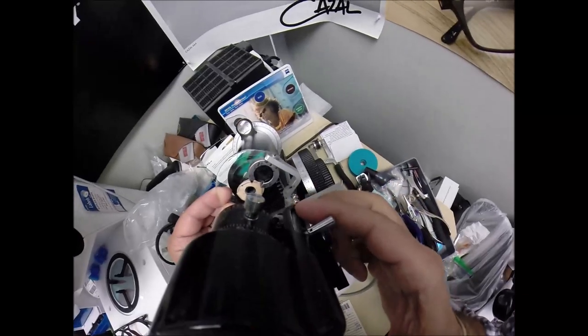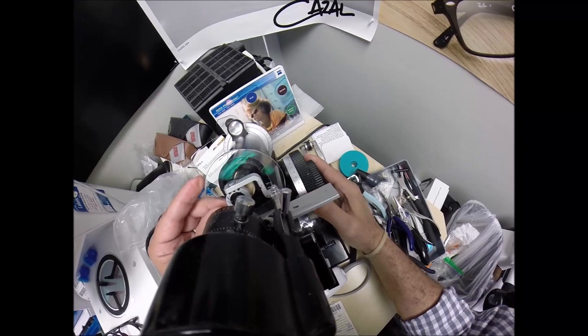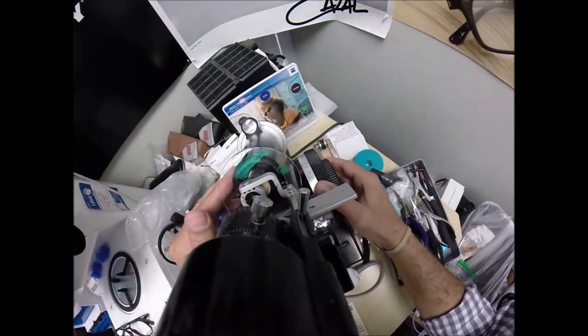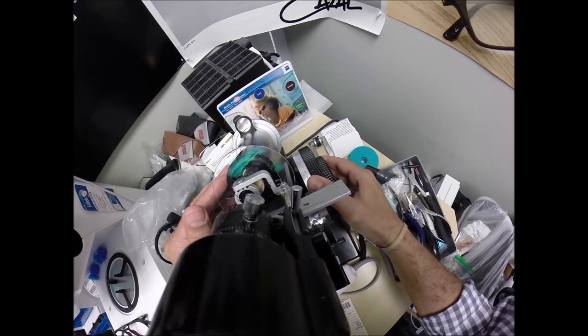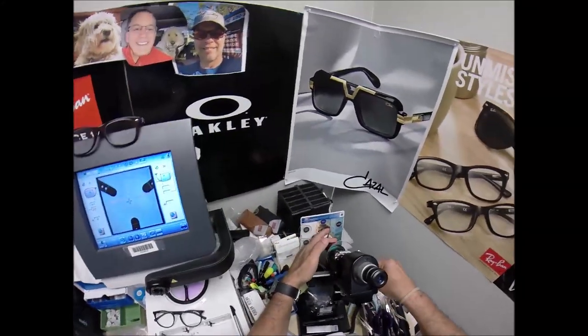There's a 170, but yeah, they start back over at zero at Zed. If I were speaking proper English, if I was anything proper, put the axis wheel on plano, make sure everything's centered. It is put the lens in, rotate into the spherical component of your prescription comes into view first. And actually, because it's plano on the 180, it's hard to get this thing centered. Let me do that because it has no power in one meridian. So we're at plano. Let me check the axis. I mean, the astigmatism correction.